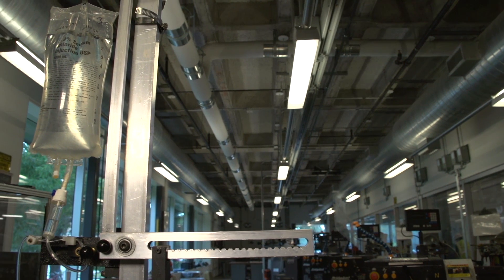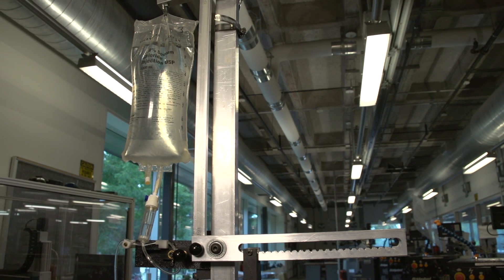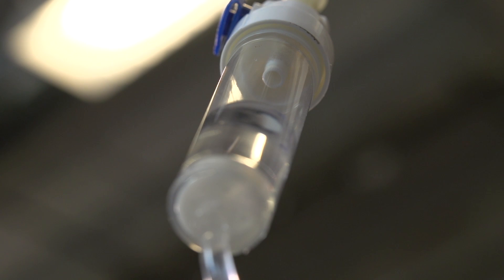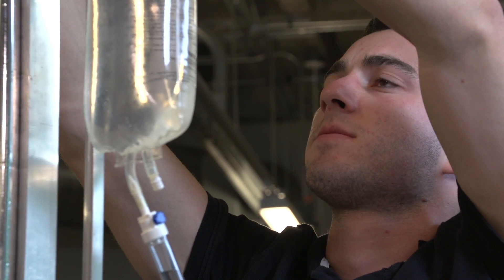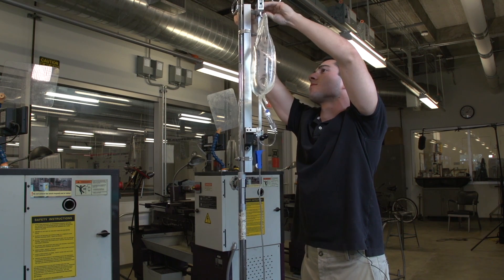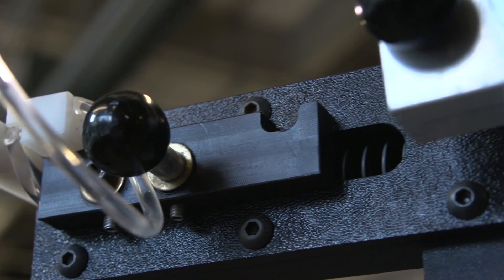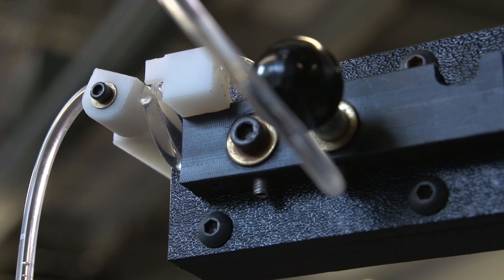The device is called IV Drip — Intravenous Dehydration Relief in Pediatrics. It's an entirely mechanical, automatic device that will regulate the volume of fluid dispensed during IV therapy. It's specifically targeted for children in developing countries, where one and a half million kids die annually from dehydration. The device will cost under $80 and is fairly easy to use.